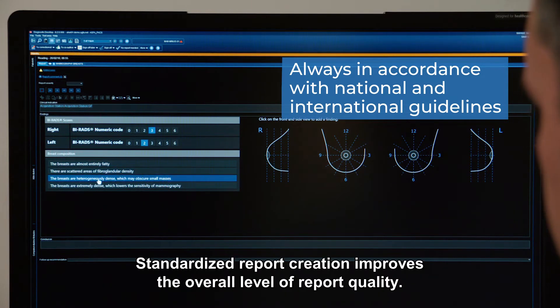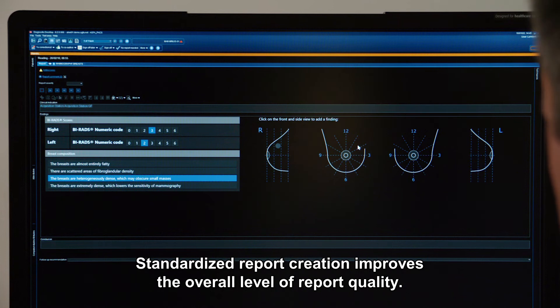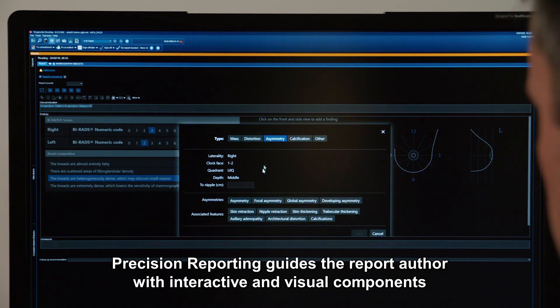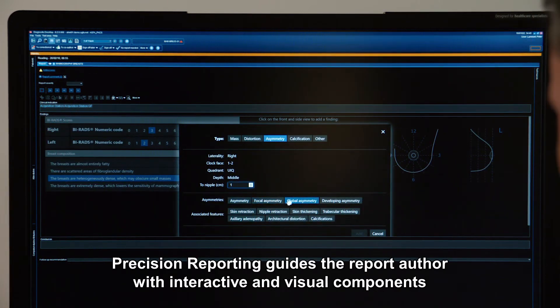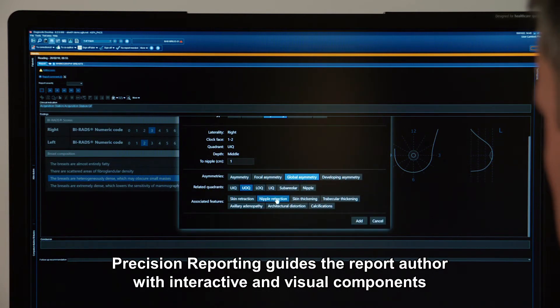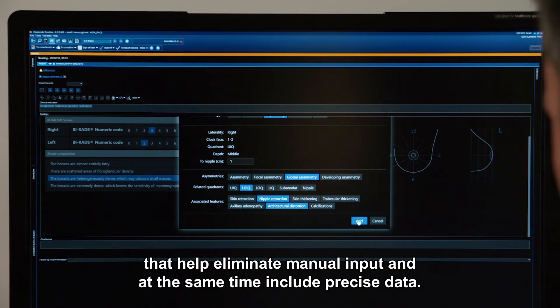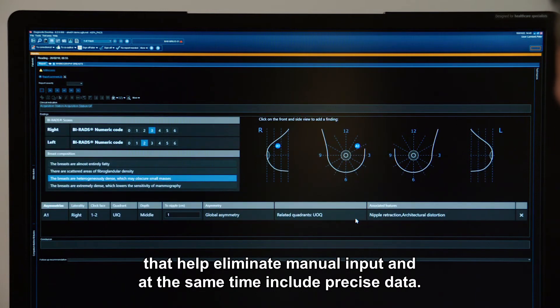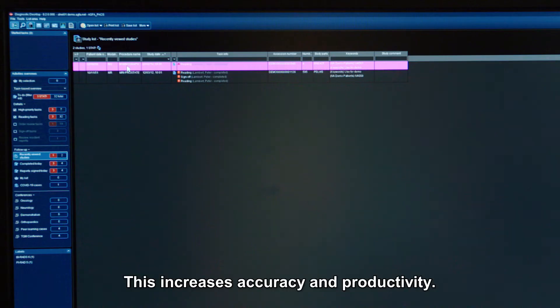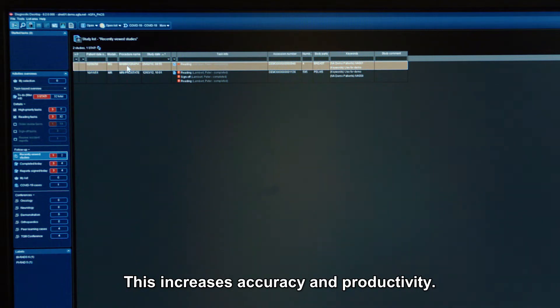Standardized report creation improves the overall level of report quality. Precision Reporting guides the report author with interactive and visual components that help eliminate manual input and at the same time include precise data. This increases accuracy and productivity.